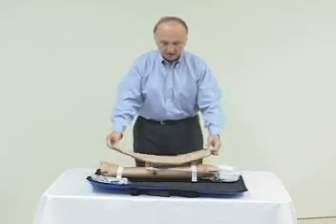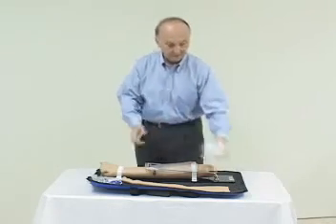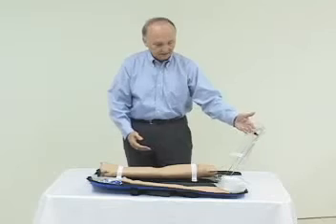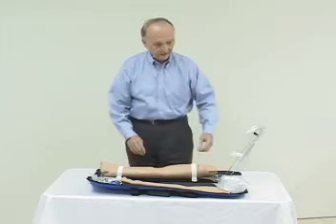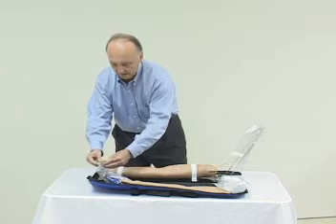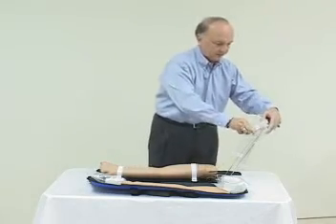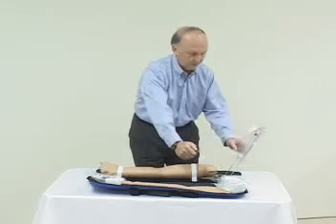This is your spare arm skin. This contains your blood concentrate. And this elevates the blood bag so that fluid can be placed here, and then flow into the arm, and then drain out. This can be removed, and the squeeze bulb put into place in this fashion, and pumped up.